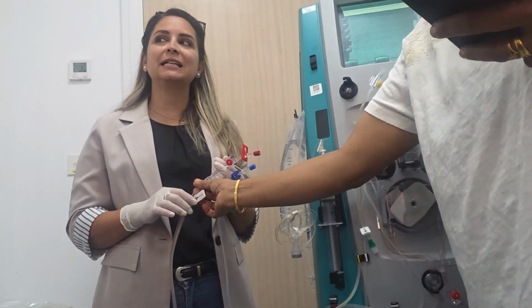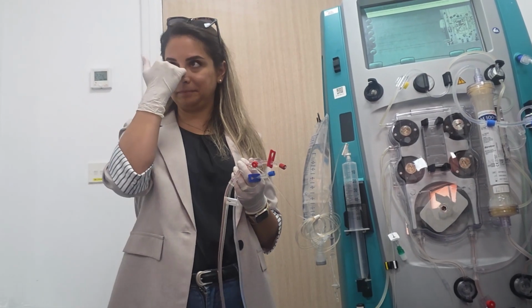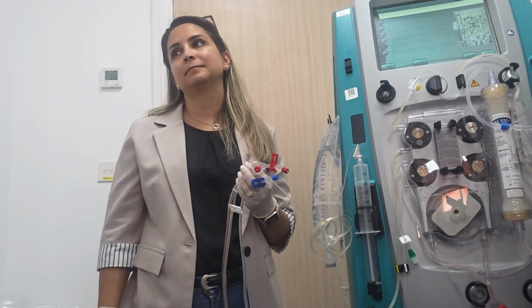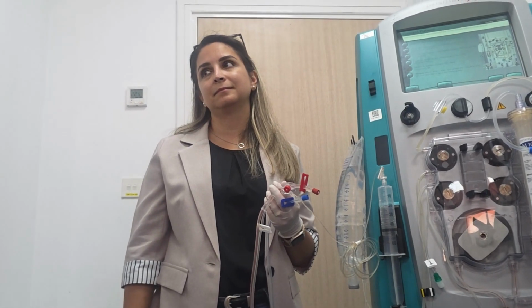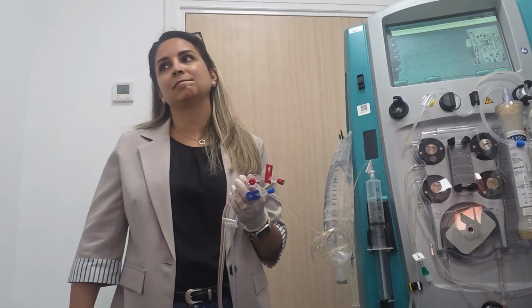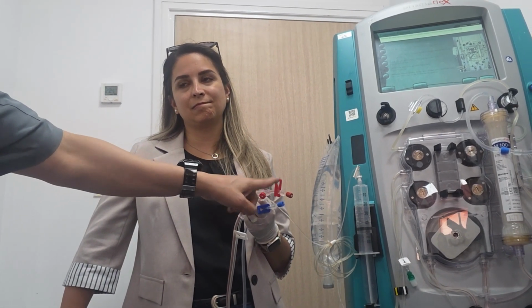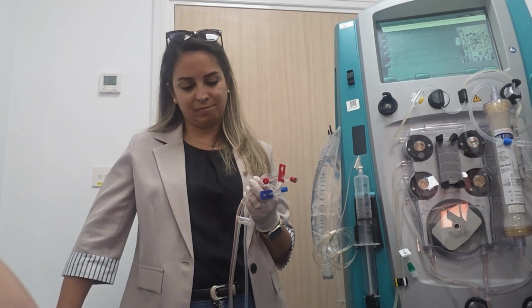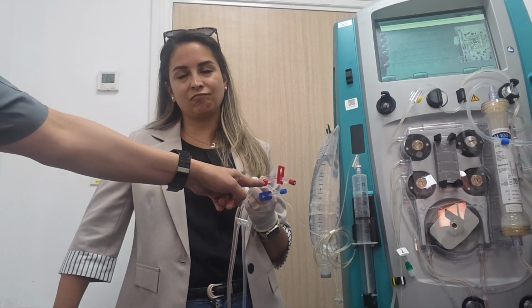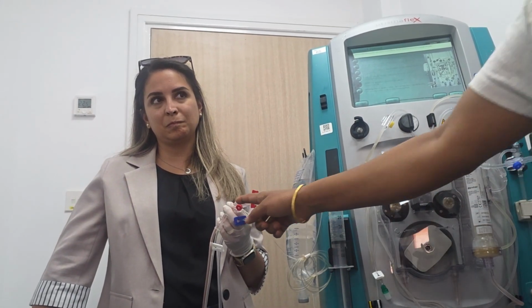Actually, even if you're going to stop, mixing is most likely to happen. But if you're going to keep on, no, if you're not going to stop it, because there's this sucking motion, no? So the direction of your blood is from the patient going to the device. So I don't think so, more or less you will have a clean specimen here. You will have a clean sample. I don't think it will come back.